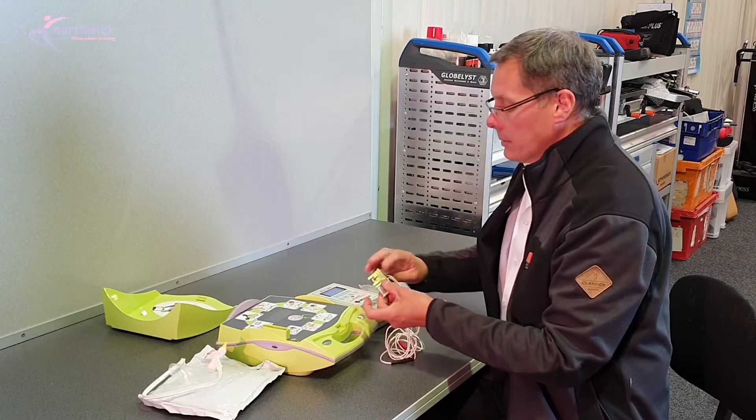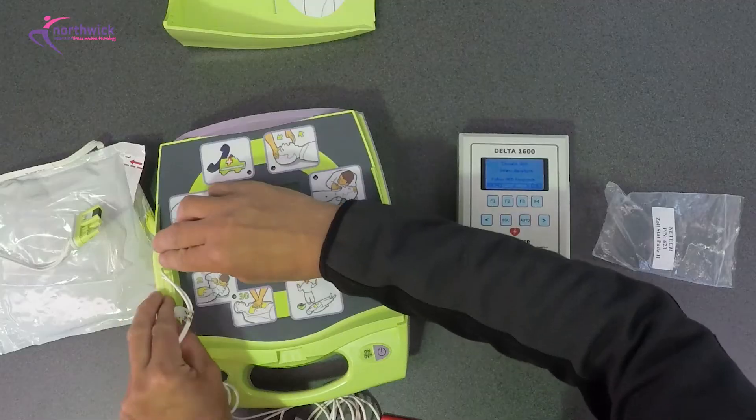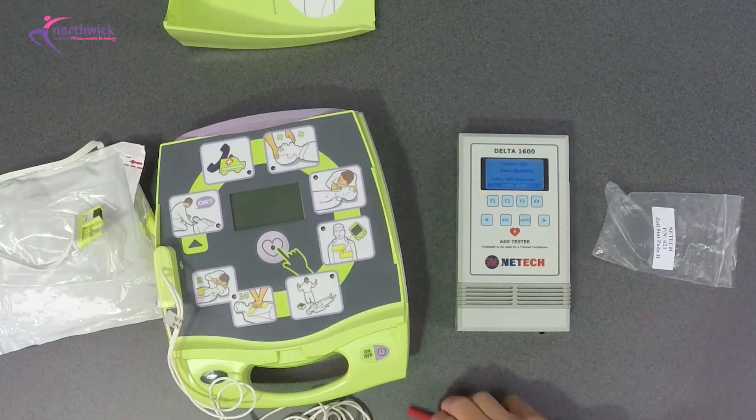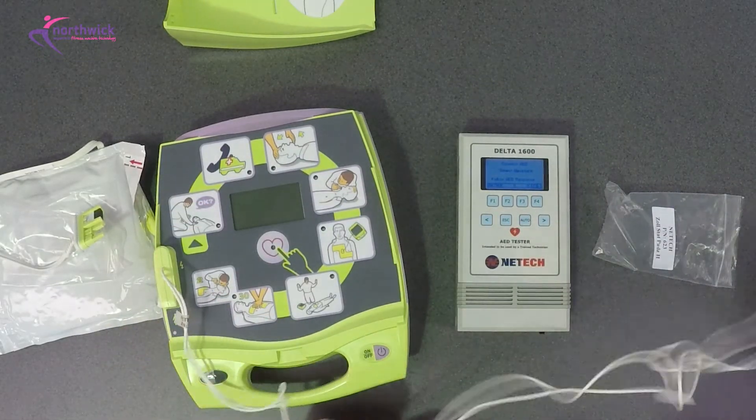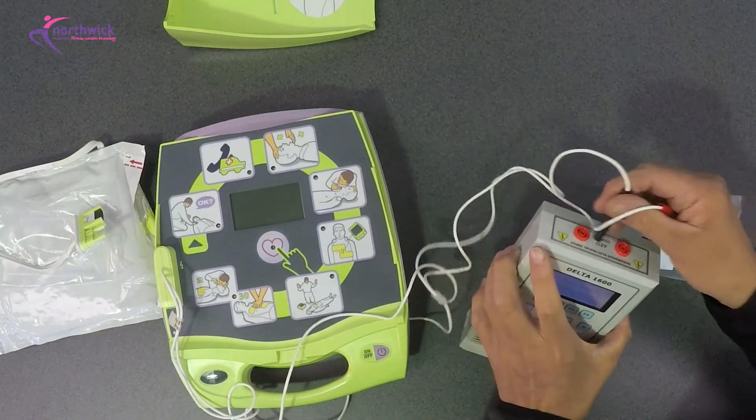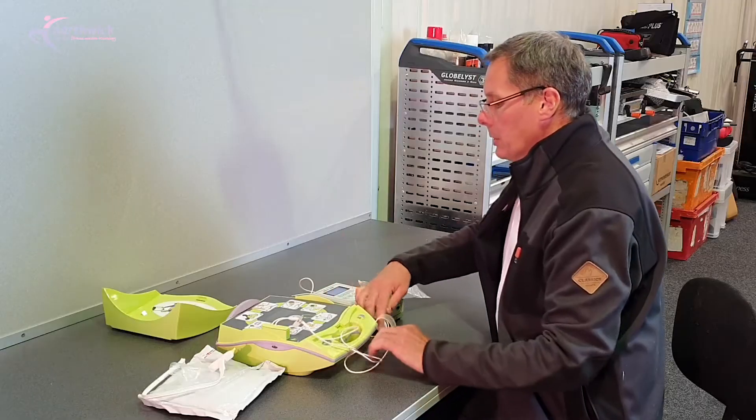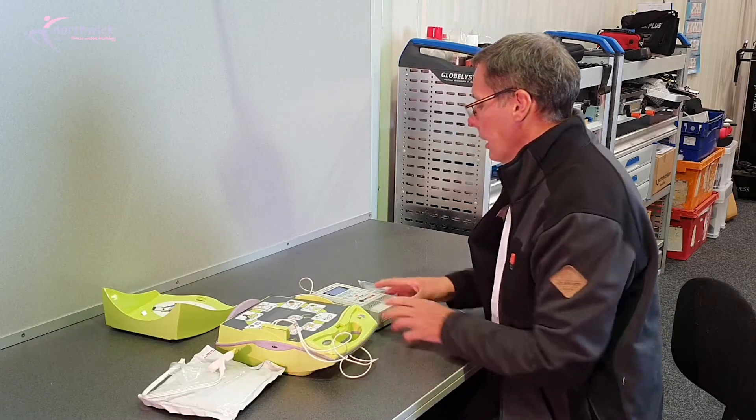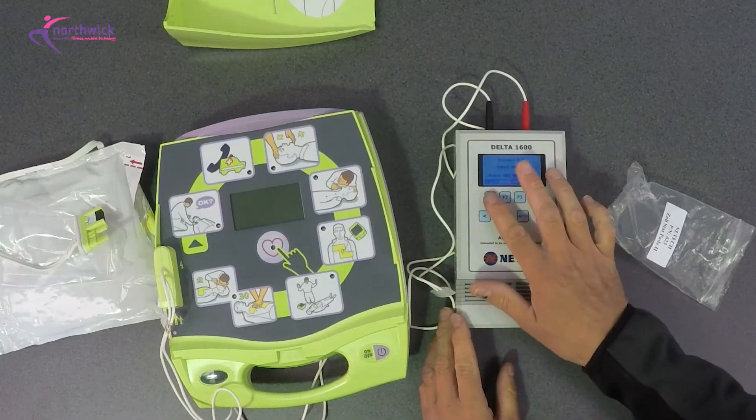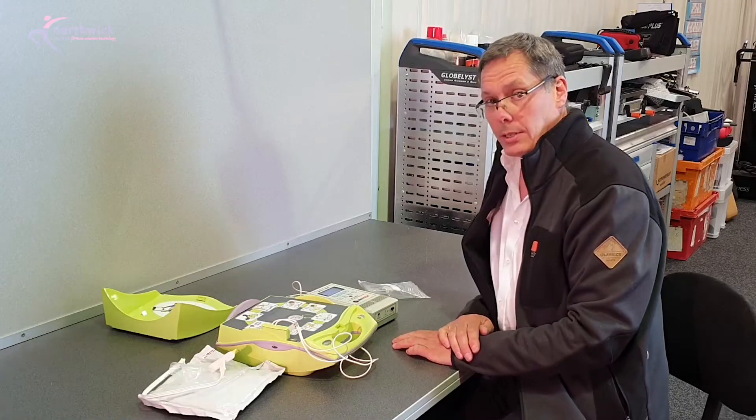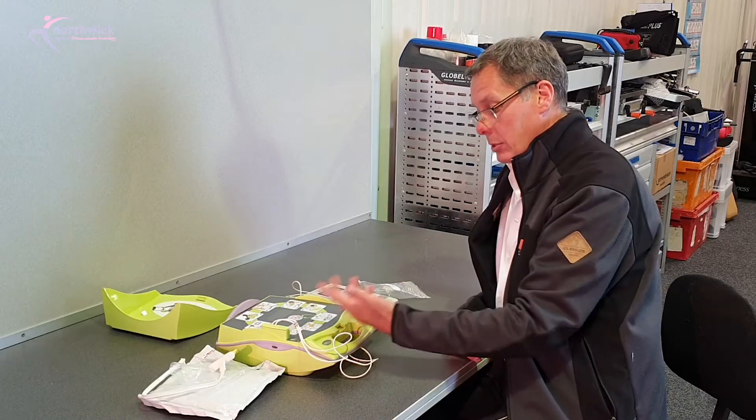In addition to everything that you would do, we do this test. So we connect our test equipment to the AED and we plug it in the back, and then we select an arrhythmia pattern which would require the AED to deliver a shock, and then we're going to switch the machine on.